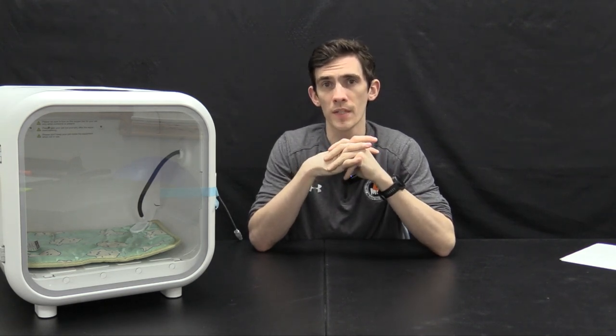This device really aims to make it easy in your search for adding oxygen for hypoxic pups or other animals. A lot of other items on the market just include enclosures with ports to add an oxygen concentrator to — that can be time consuming, with a lot of different add-ons, connections, or things you might not think of that you need. With this self-contained device, you have a guaranteed 40% or greater oxygen within 10 minutes, no complicated setup, no additional purchases. You're ready to go from the time the box arrives.